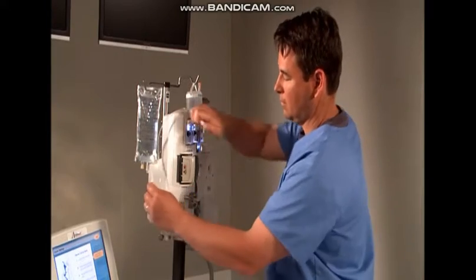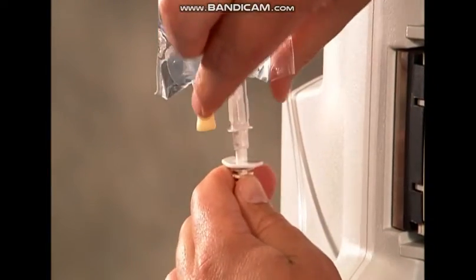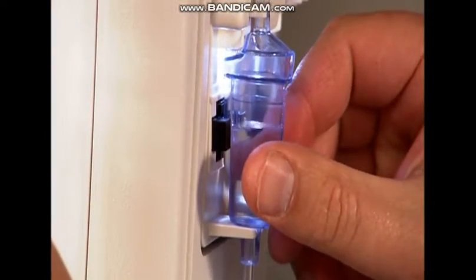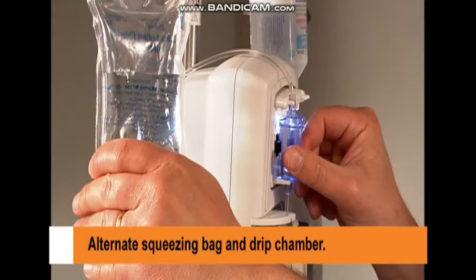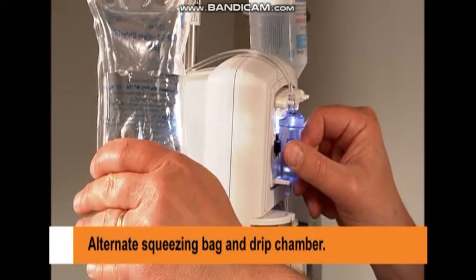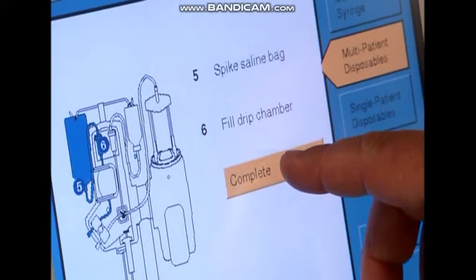Step 5. Spike the saline bag. Step 6. Fill drip chamber completely. To speed the process, hold the saline bag in one hand and the drip chamber in the other, and alternately squeeze the bag and the drip chamber. When the drip chamber is full, touch Complete.